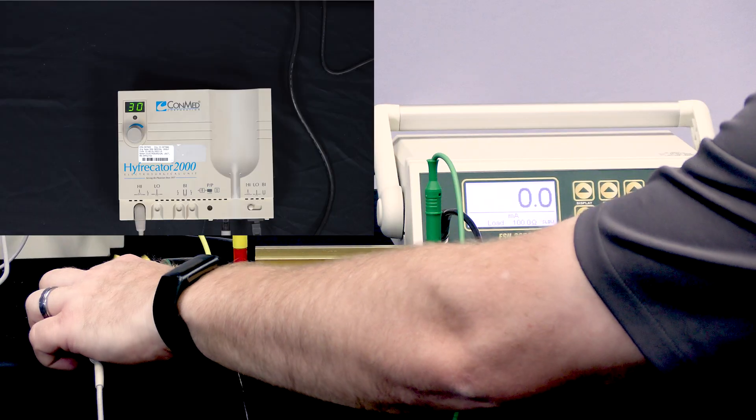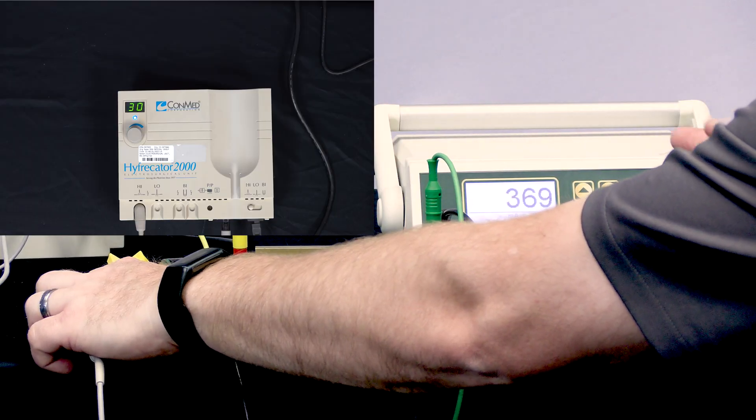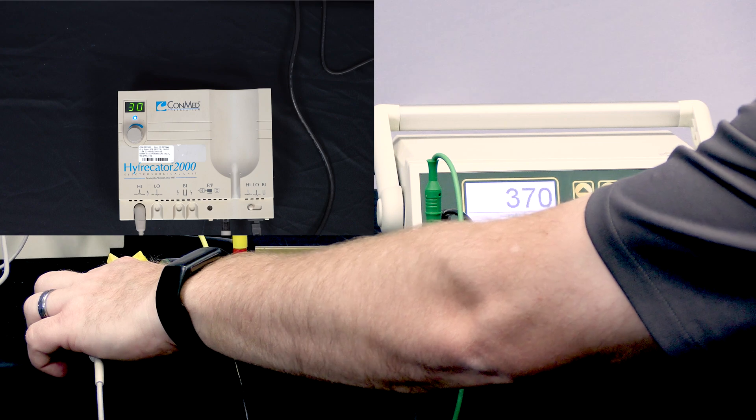And so when we activate the generator here, we can see that we get a measurement on the ESU 2050.